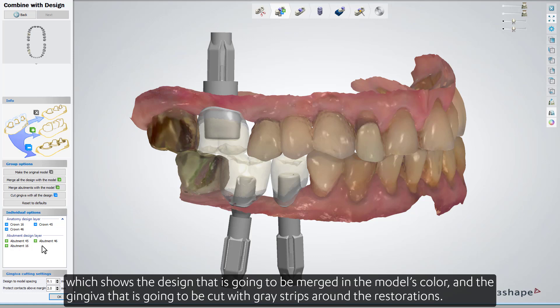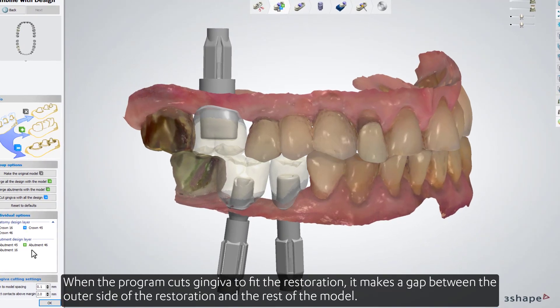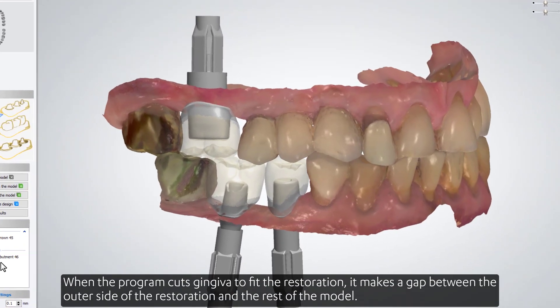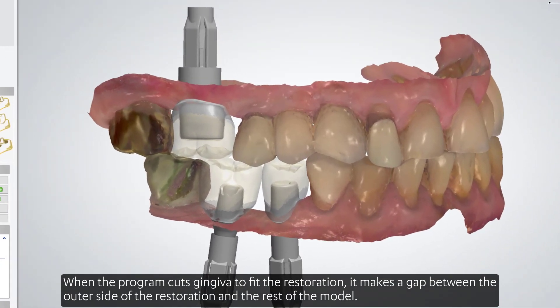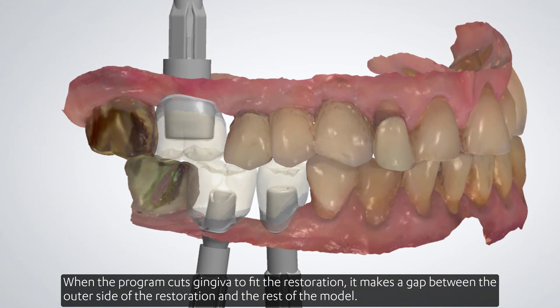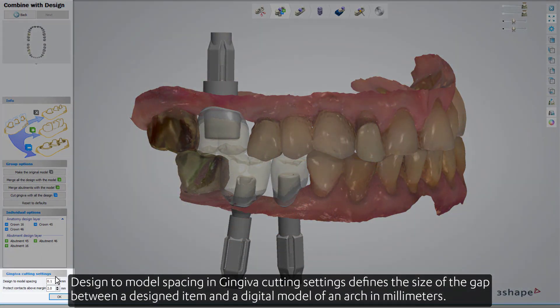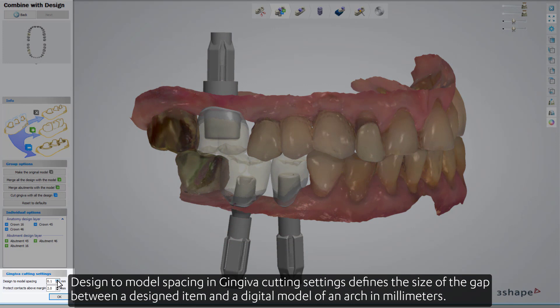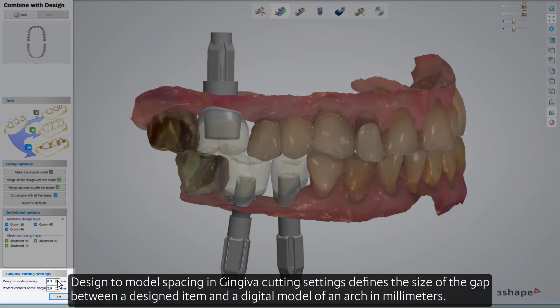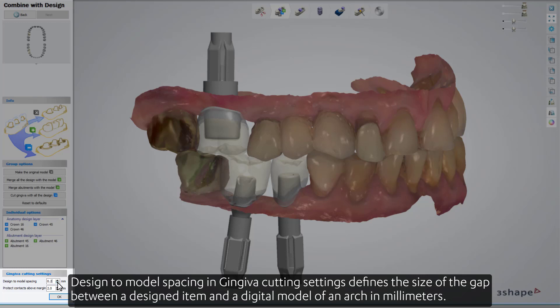The preview will show the design that is going to be merged on the model's color and the gingiva that's going to be cut with grey strips around the restorations. When the program cuts gingiva to fit the restoration, it makes a gap between the outer side of the restoration and the rest of the model. The 'Design to Model Spacing' in the gingiva cutting settings defines the size of that gap in millimeters.